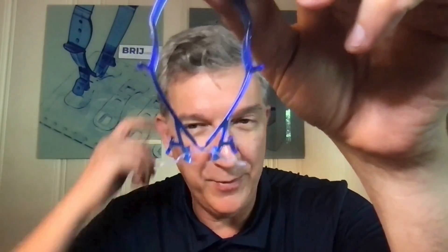Now, you look at it and on one hand it's so super simple. I had people say, 'What'd you do, did you do that in your basement in a weekend?' And I said no — it took many millions of dollars, more than a decade, a bunch of engineers to get it to the point that you can manufacture it, work out the kinks, and get it to work over and over with the right adhesive. So there are no allergic reactions, and it doesn't cause blisters or irritations. There are 10,000 things to work out. But when you look at it, it just rotates open, rotates back. These little struts are really important because they create this dual axis of rotation that, when you let go, pulls things together and pushes that tension reduction beneath the surface. And that's probably why we're seeing decreases in wounds — it's taking the tension off not just on the skin, but underneath as well.